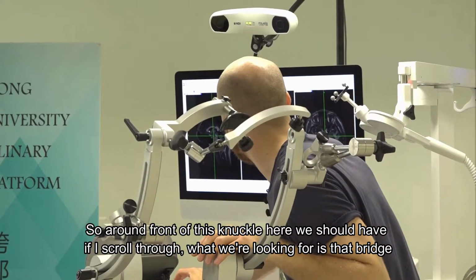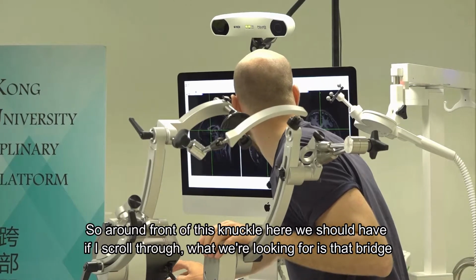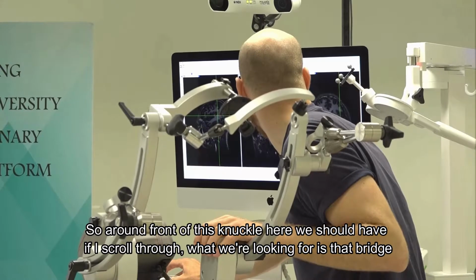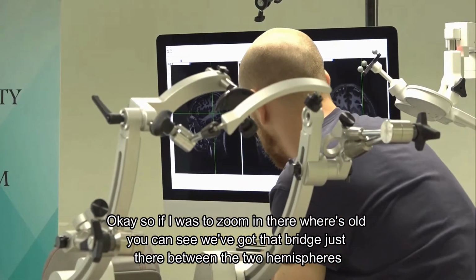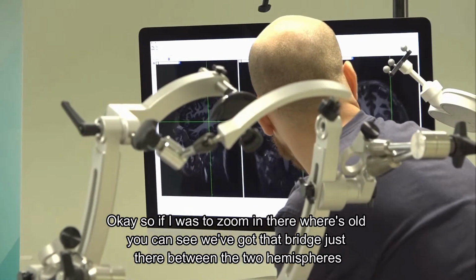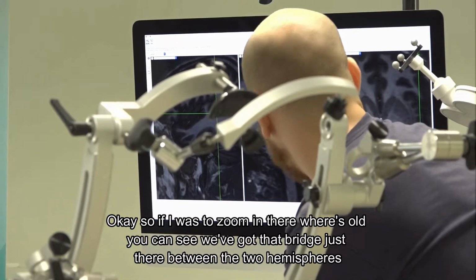Around the front of this knuckle here, if I scroll through, what we're looking for is that bridge. If I zoom in, you can see we've got that bridge just there between the two hemispheres.